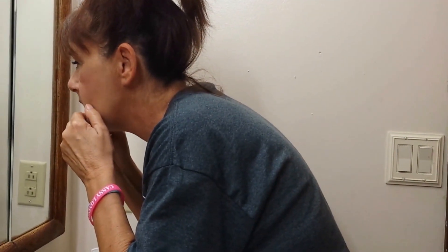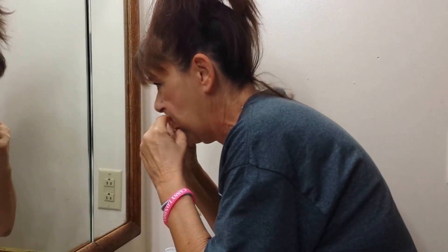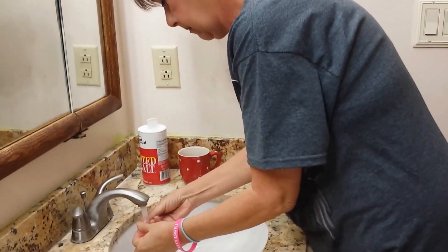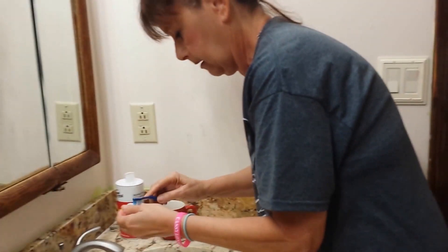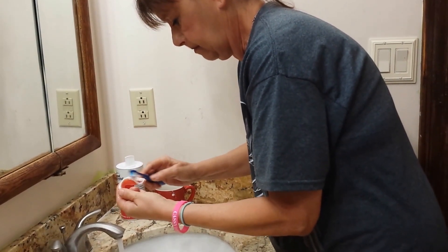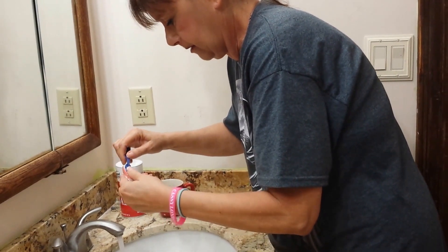Taking the bottoms out first — off they come. Put them down, brush them up, and then set your face here.